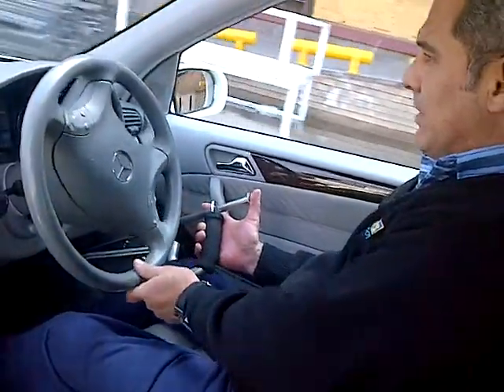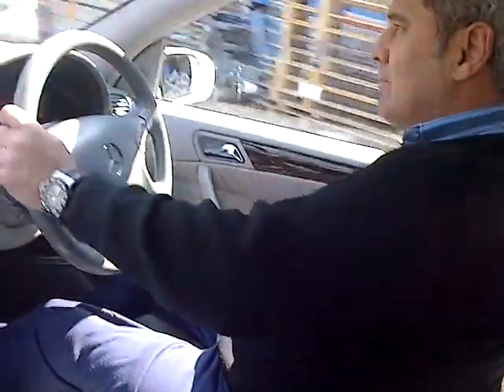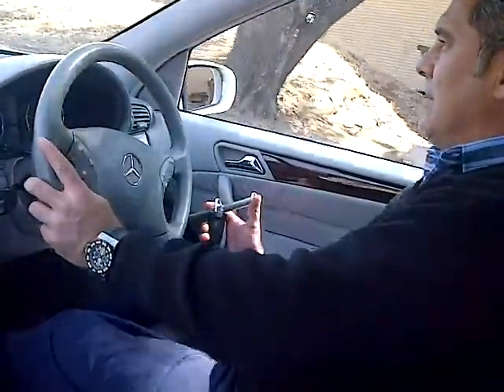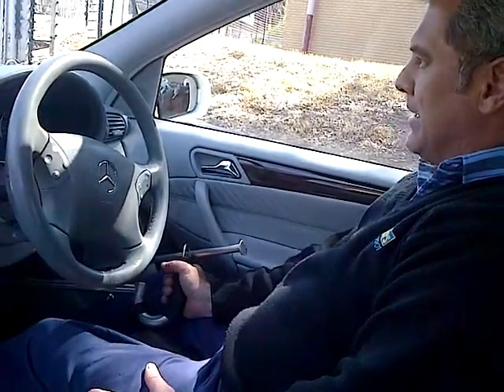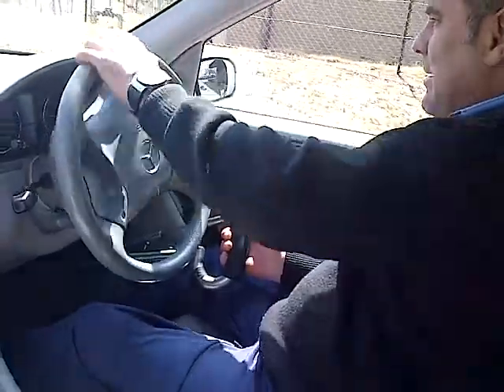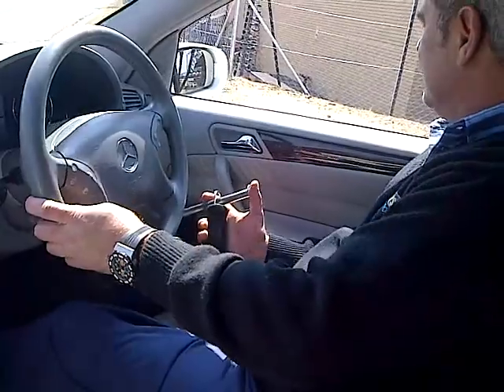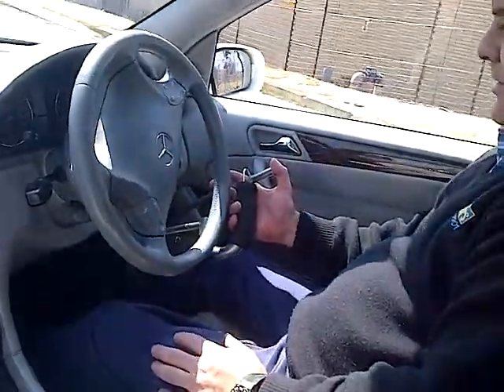One important thing with a Mobi driver is you always have to have the controls in your hand — no matter what. Always have your hand on the brake. To accelerate, just press down with your thumb. There we go.